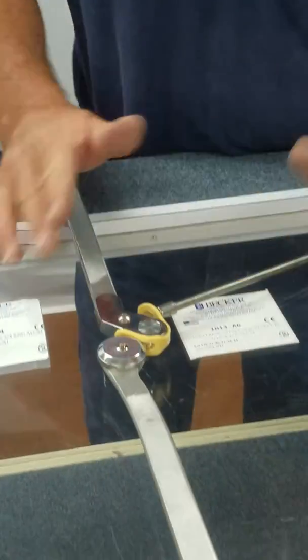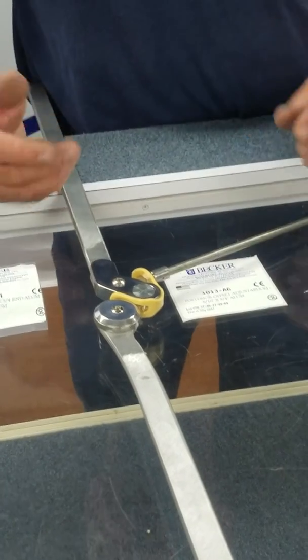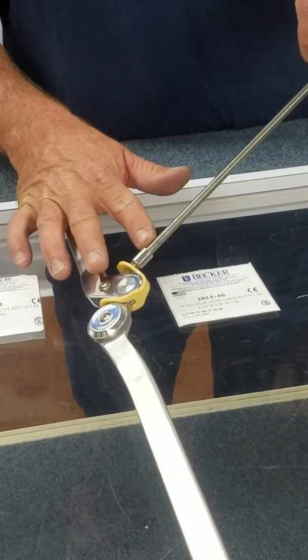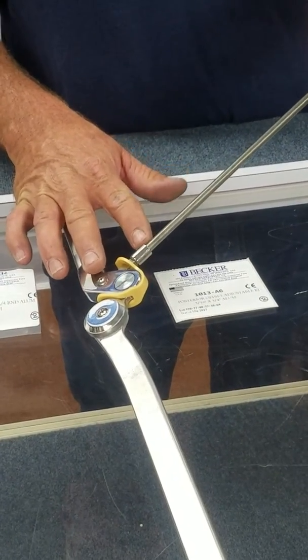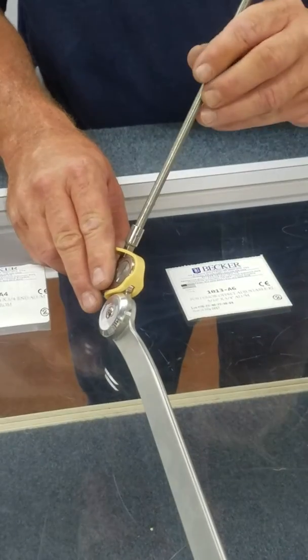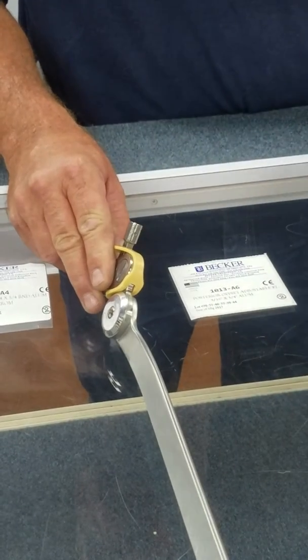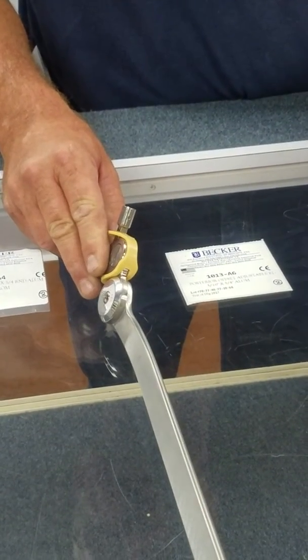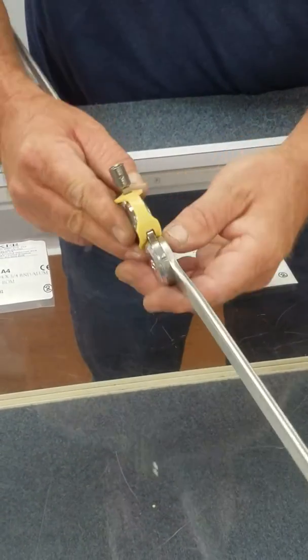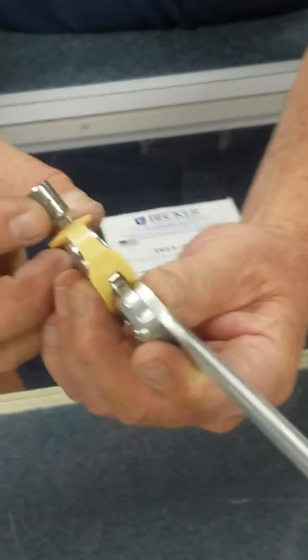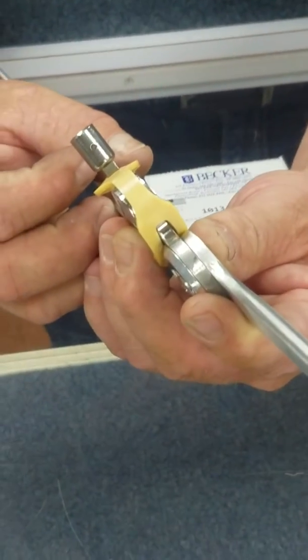When we put it together here, we silver solder it inside. But for people who are not capable of welding, one of the features is a small dimple in the bottom of the bell.